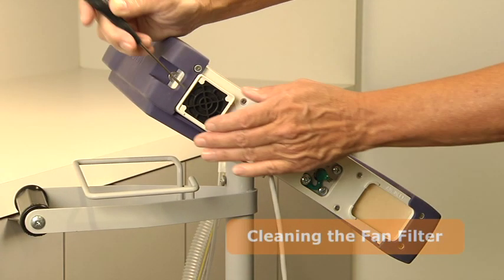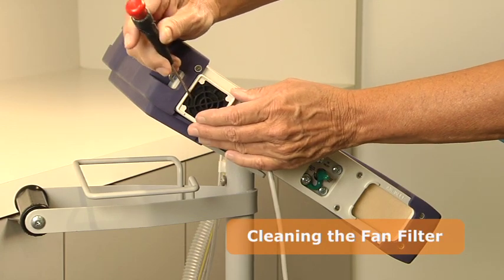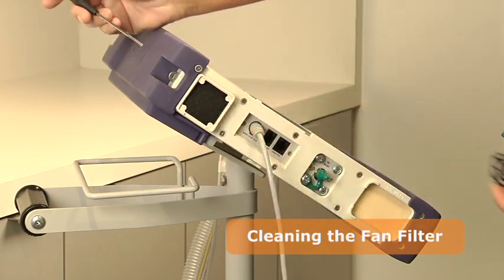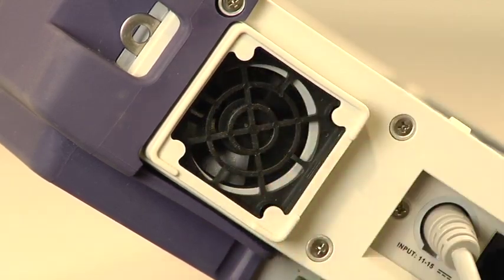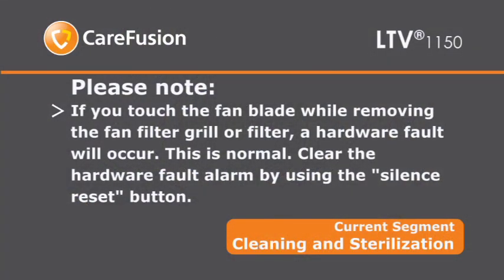Very carefully, use a small screwdriver to remove the fan filter grill from its housing. Remove the fan filter by gently pinching it with your fingers, then pull it out. If you touch the fan blade while removing the fan filter grill or filter, a hardware fault will occur. This is normal. Clear the hardware fault alarm by using the silence reset button.